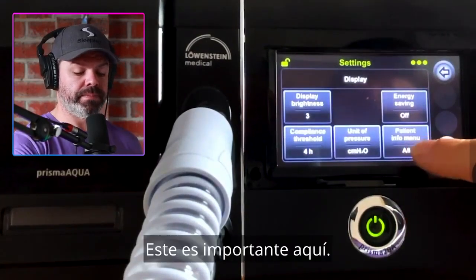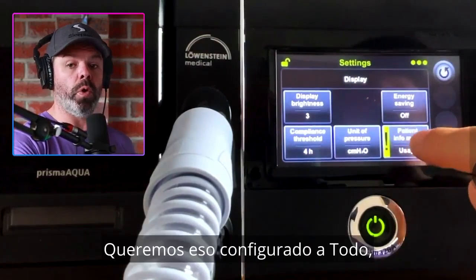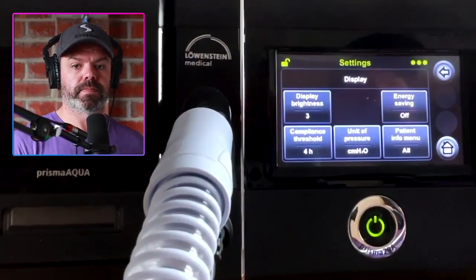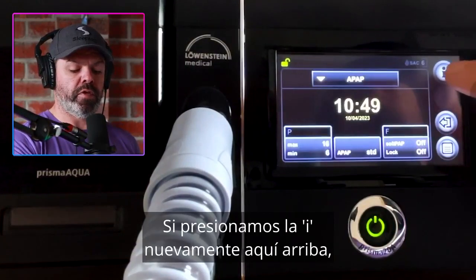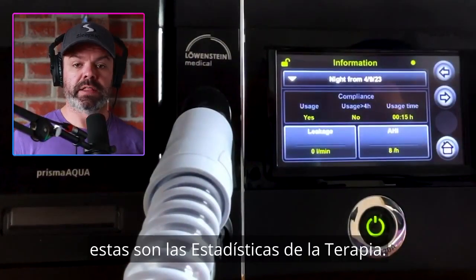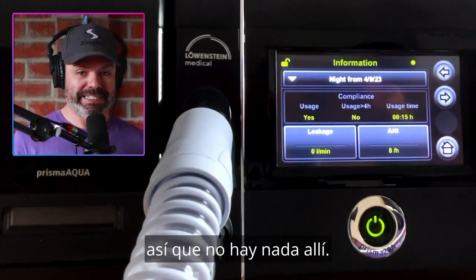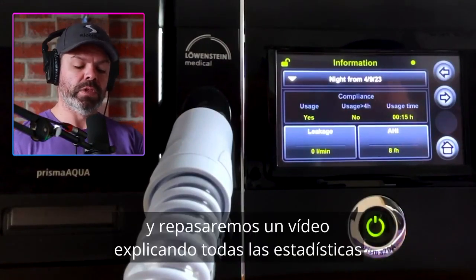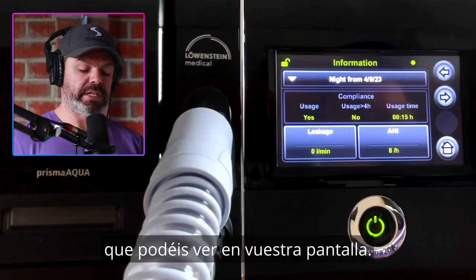The patient info menu — we want that set to all, because this will give you all the statistics in the information section. If we press the eye icon again up here, these are the therapy statistics. I haven't used this device yet so there's nothing there, but I'll come back to that and go through a video explaining all the statistics you can see on your screen.